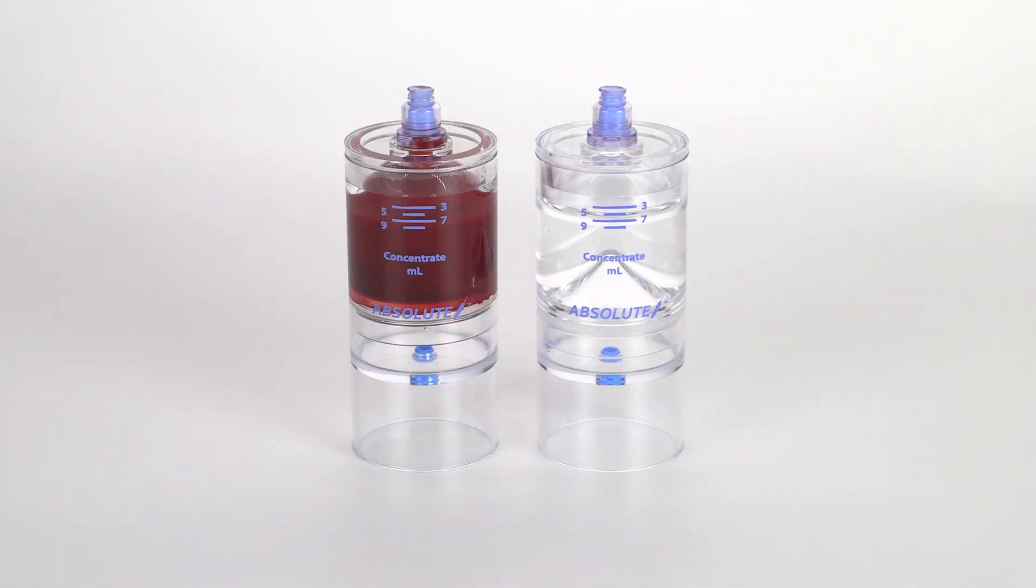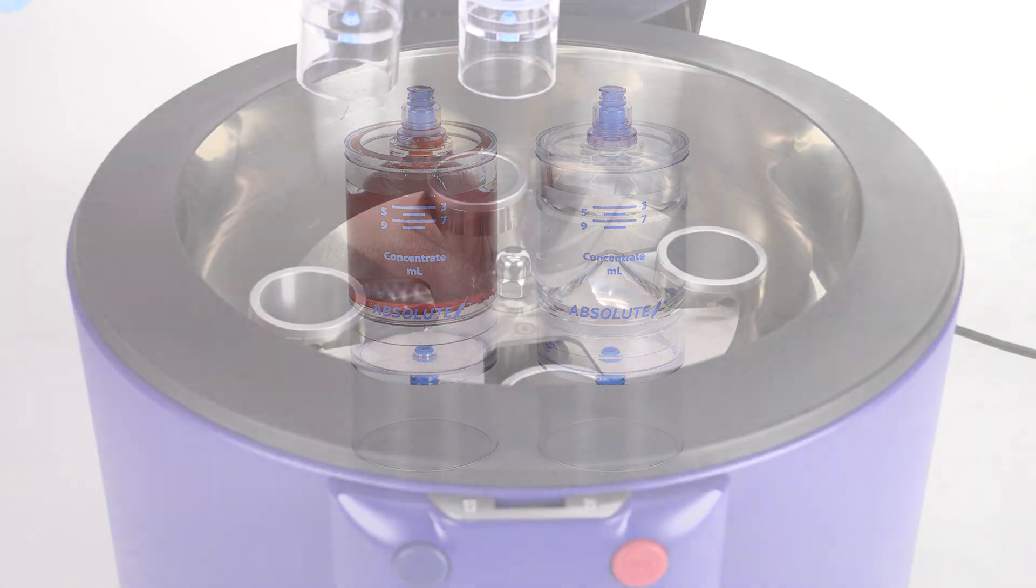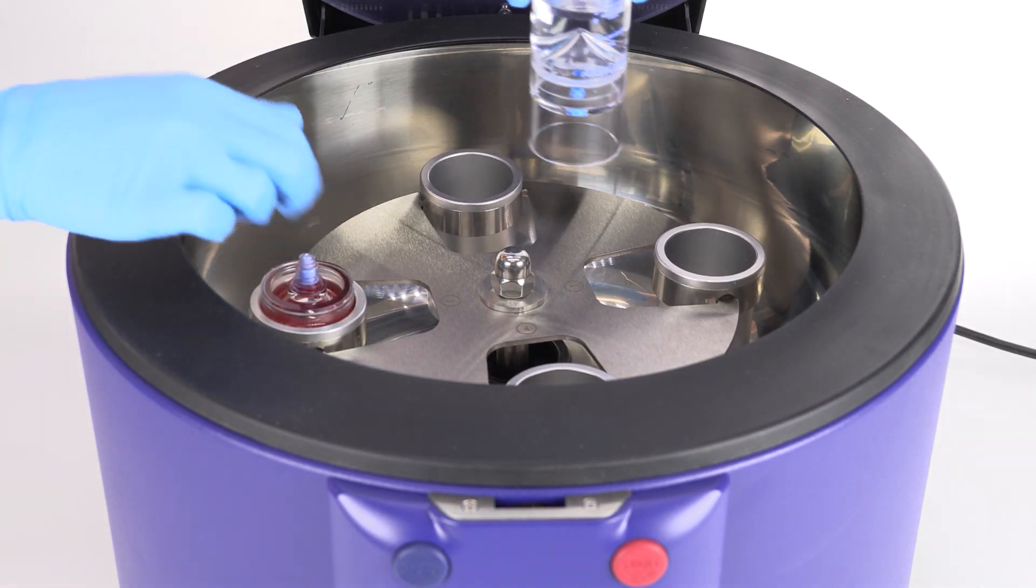Use the counterbalance device to counterbalance with equal volume. Place both devices in the centrifuge rotor at opposite ends.